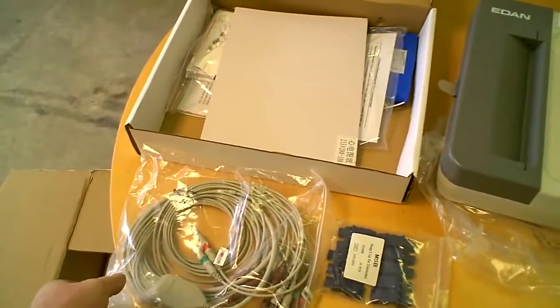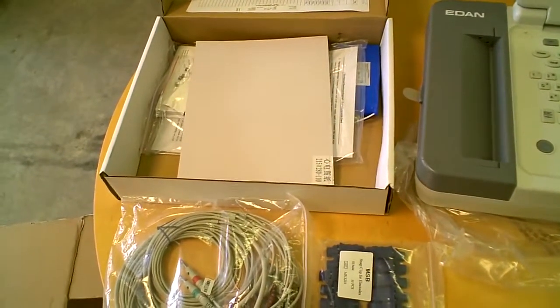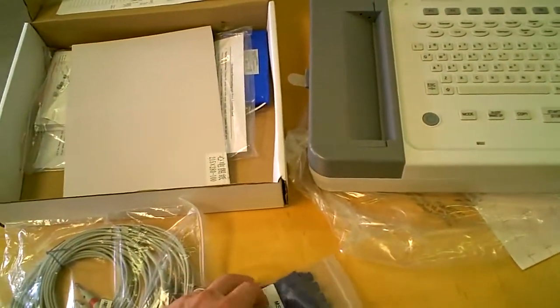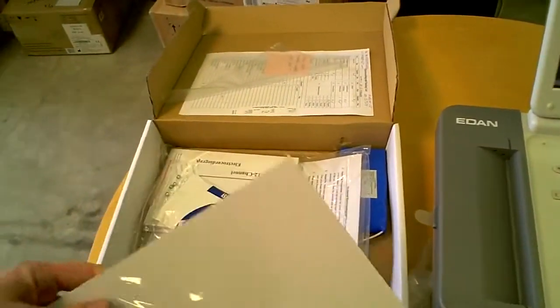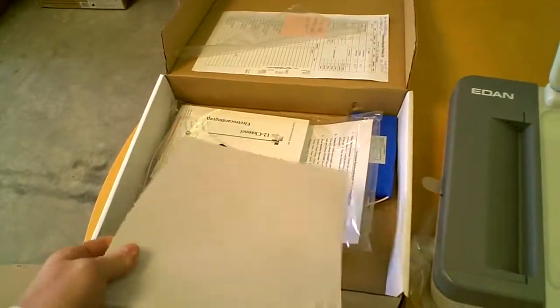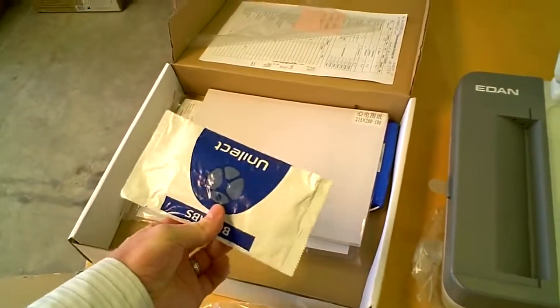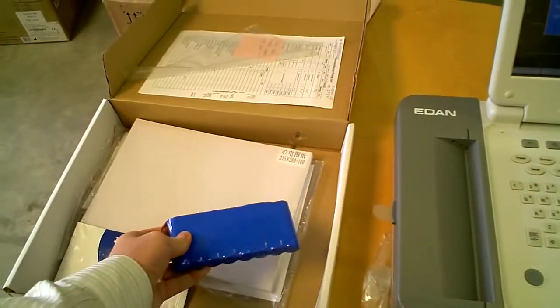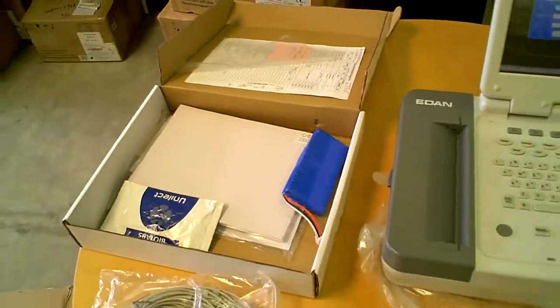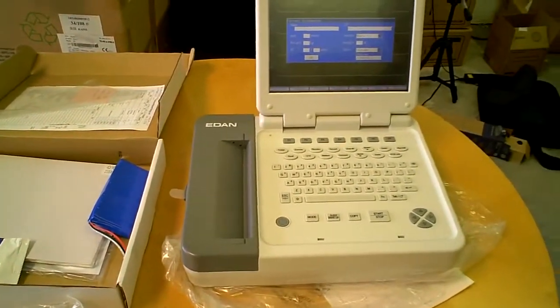Here are the contents you'll see in this particular product, very similar to the other one: patient lead cables with your banana connectors, universal clips, an 8.5 by 11 full page printout, electrodes, and a battery — which is obviously important as well. That concludes the information for the SE12 Express with optional stress.